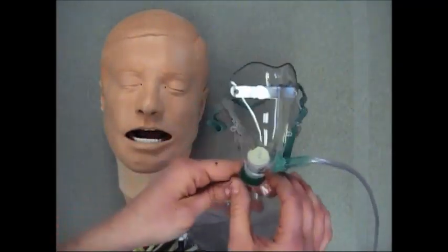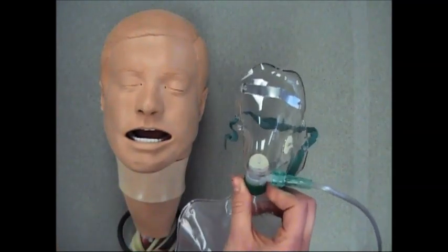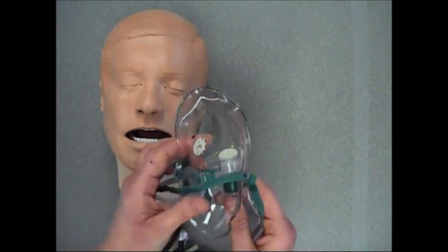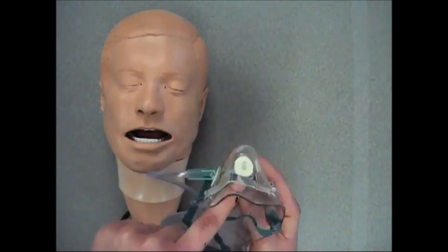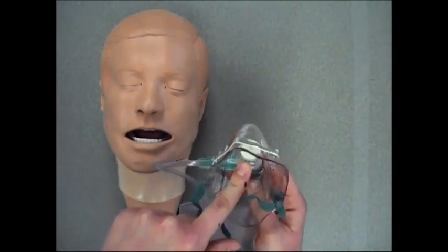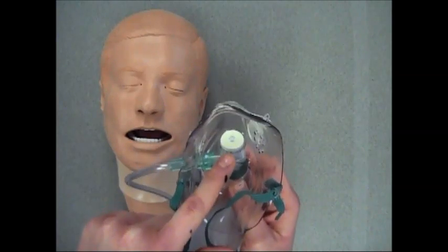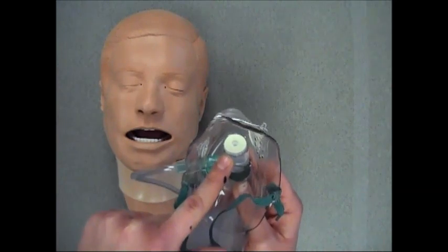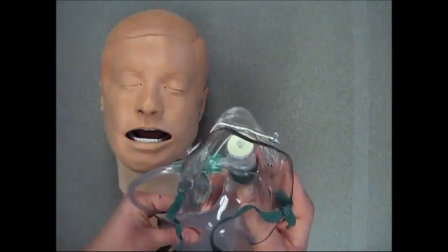The first one-way valve that I want to show you is the valve that goes between the bag and the mask here. What this will do is allow the patient to only breathe in oxygen from the bag.